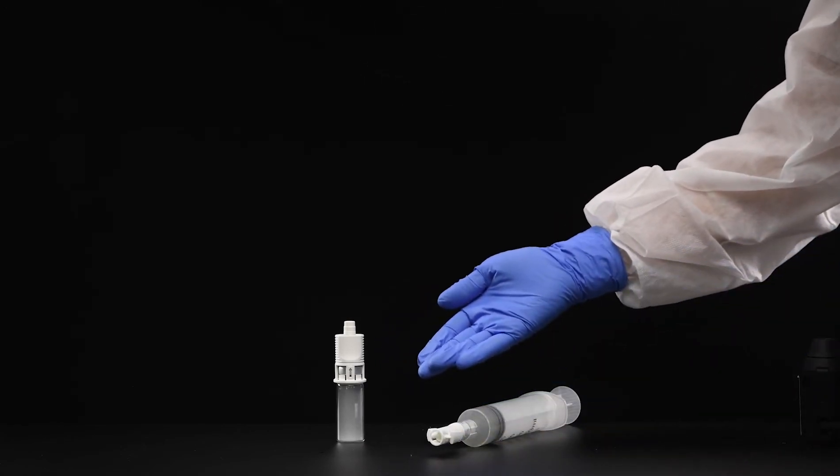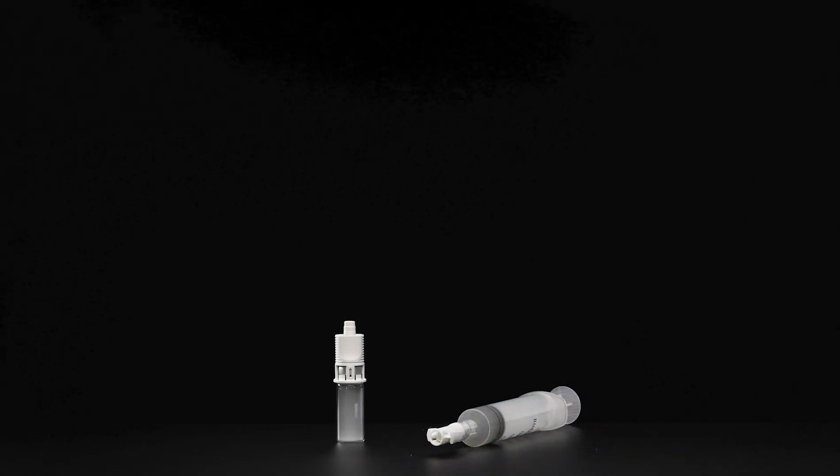The CHEMFORT closed system transfer device prevents the escape of vapors to the environment, keeping healthcare personnel safe when handling all known hazardous drugs.